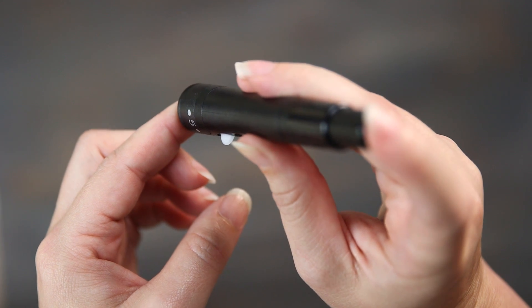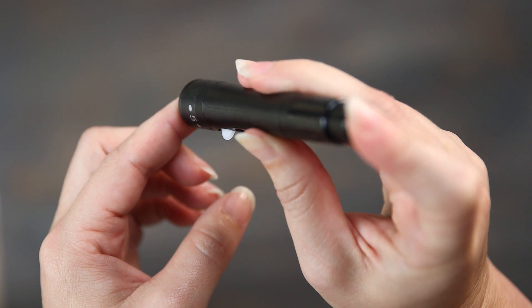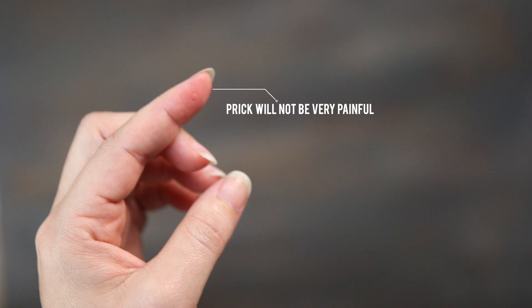Hold the lancing device to the side of your finger and press the trigger. Don't worry, it shouldn't really hurt.